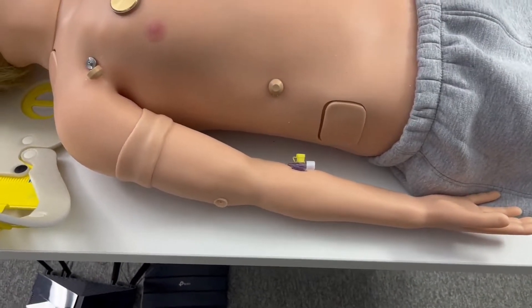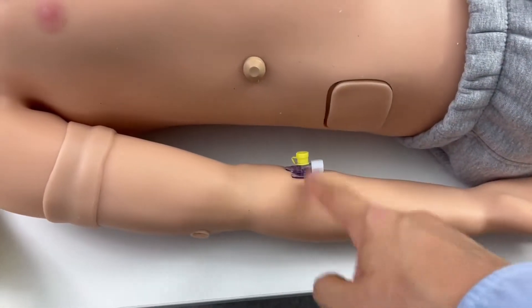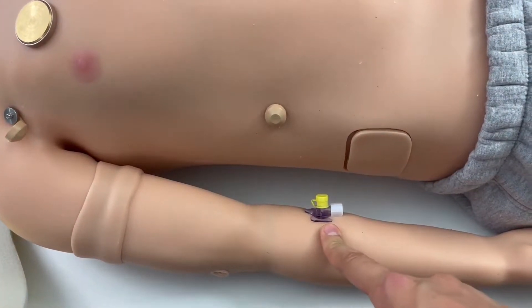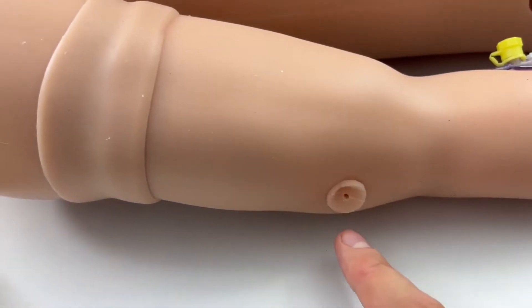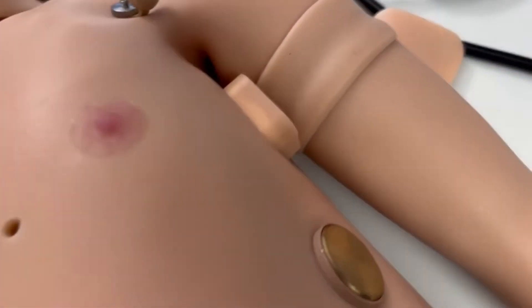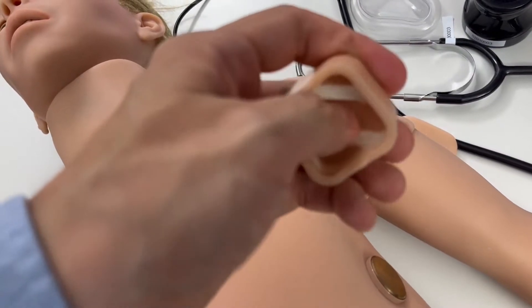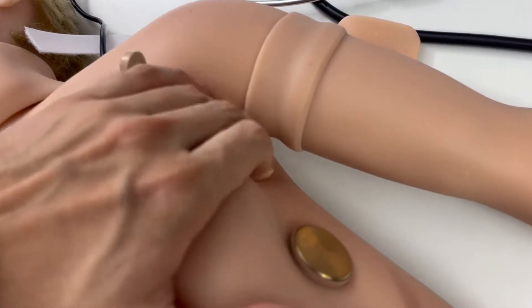The new IV arm is wet and dry, so you can choose however you like to use it. You give it a few syringes of air or a few syringes of water to recalibrate it, and here you can see where the water outlet will be coming out. On the other side is the new pleural drainage module — you can see it with the harder plastic ribs and the softer silicone part. You just stick it in, and it's a consumable that you can replace and use a number of times. It can sit flush with the skin.